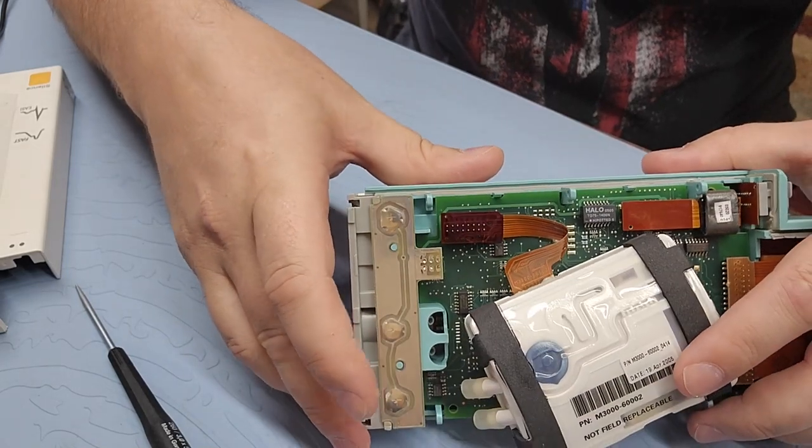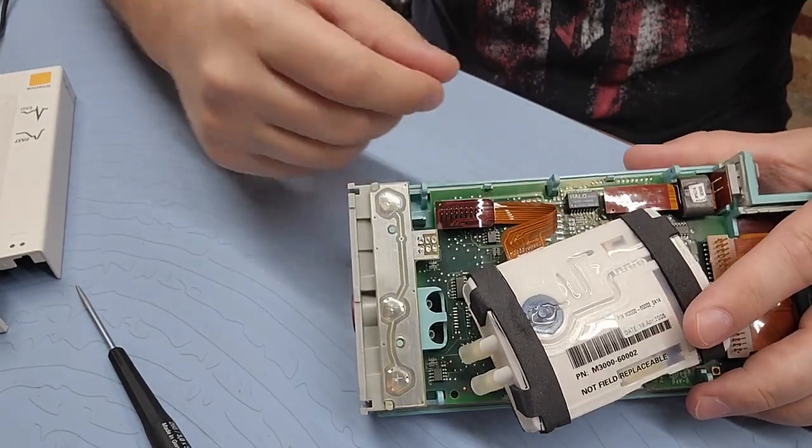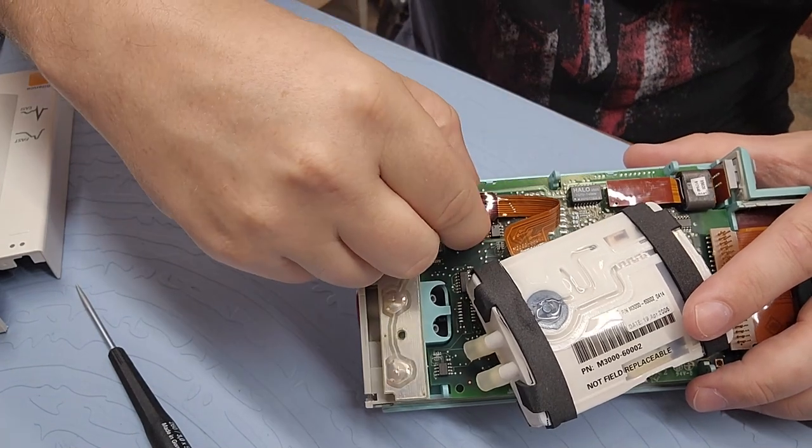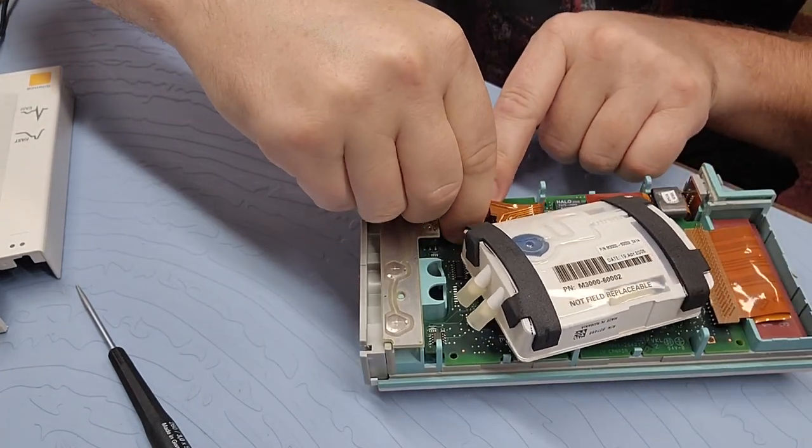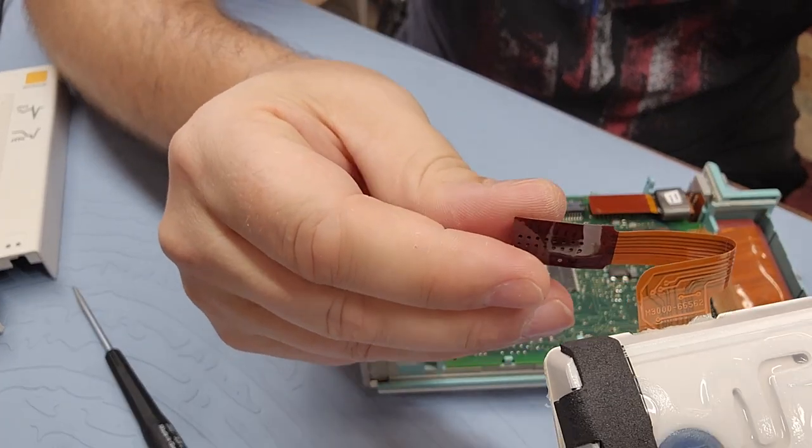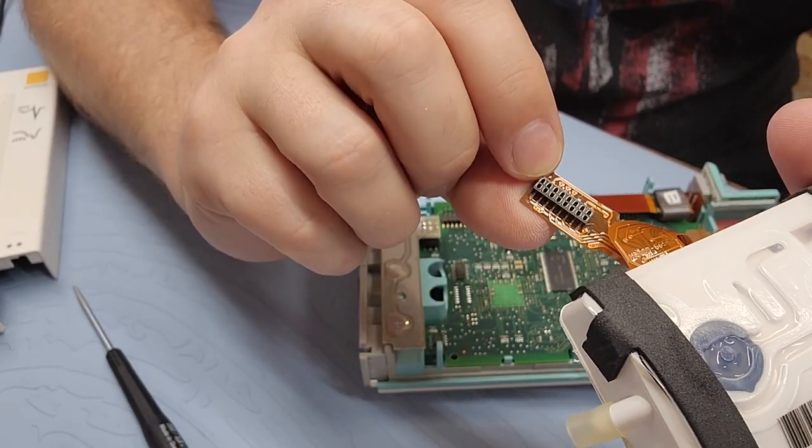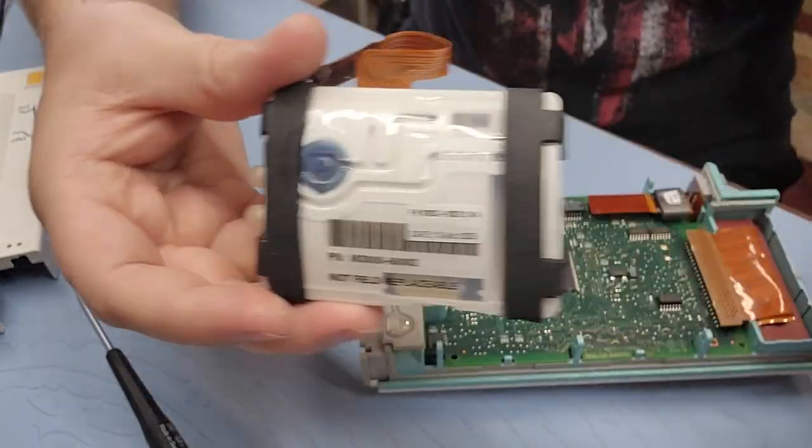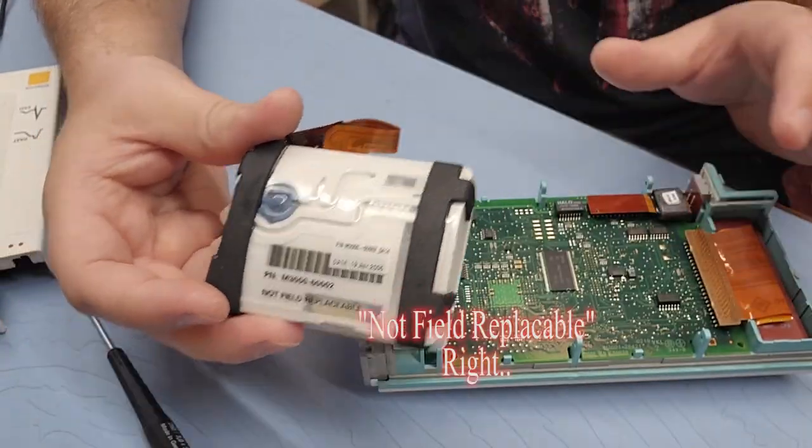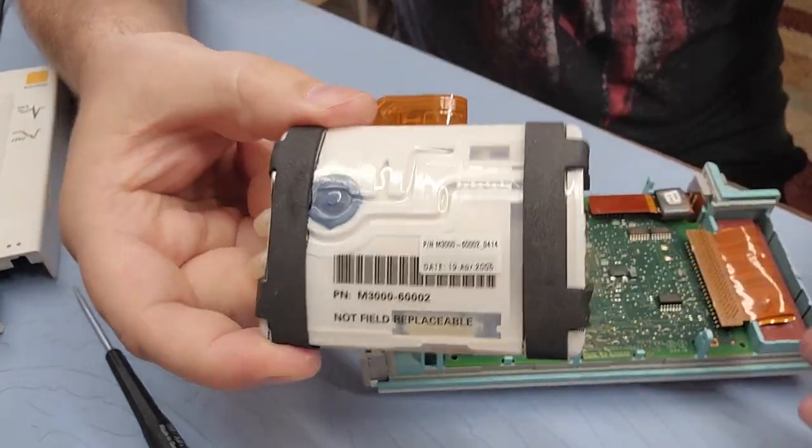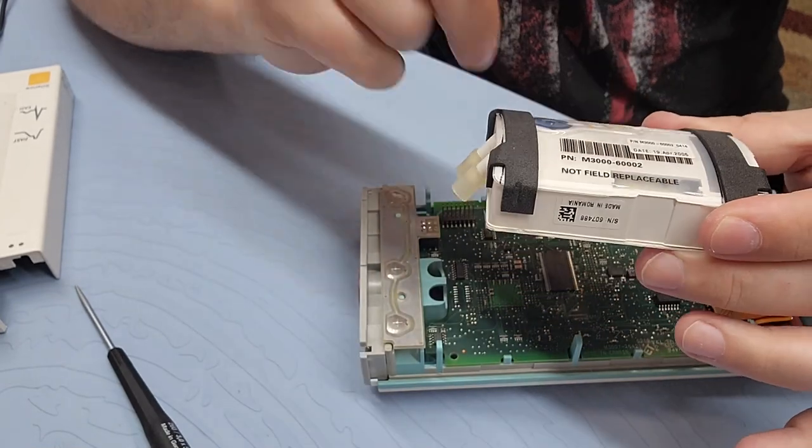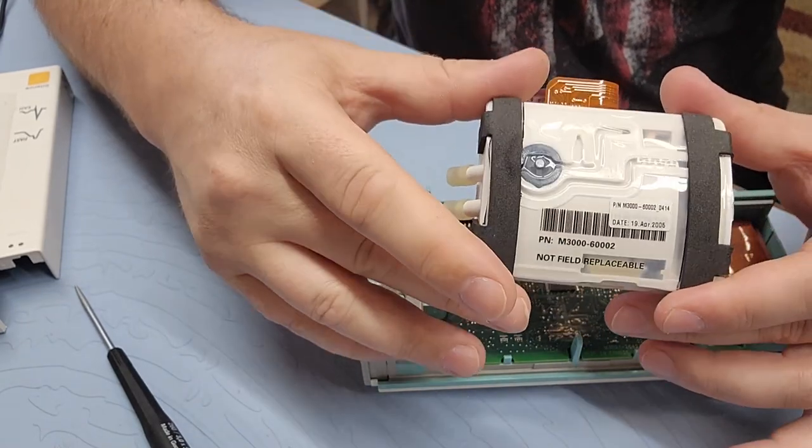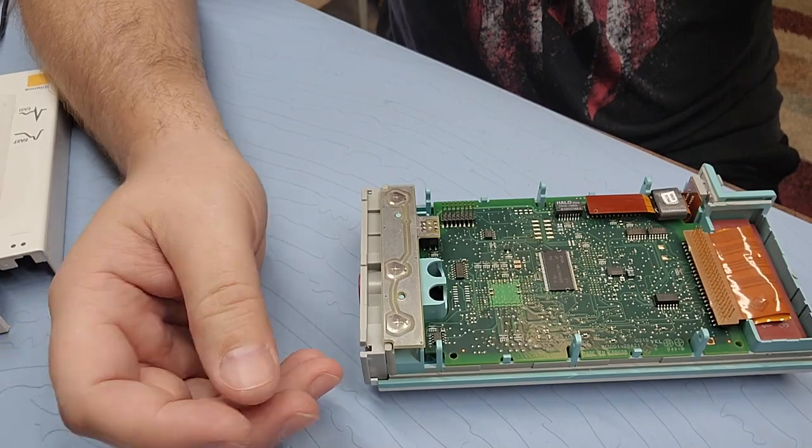So now you can see the NIBP pump and the ribbon cable is really unique on these things. You can see that there is a through via for this pump and it's really easy. It's super easy to change out this pump. But this guy right here is often the problem with these modules. So this guy has stood the test of time. It's from 2005. Probably still good. I bet.